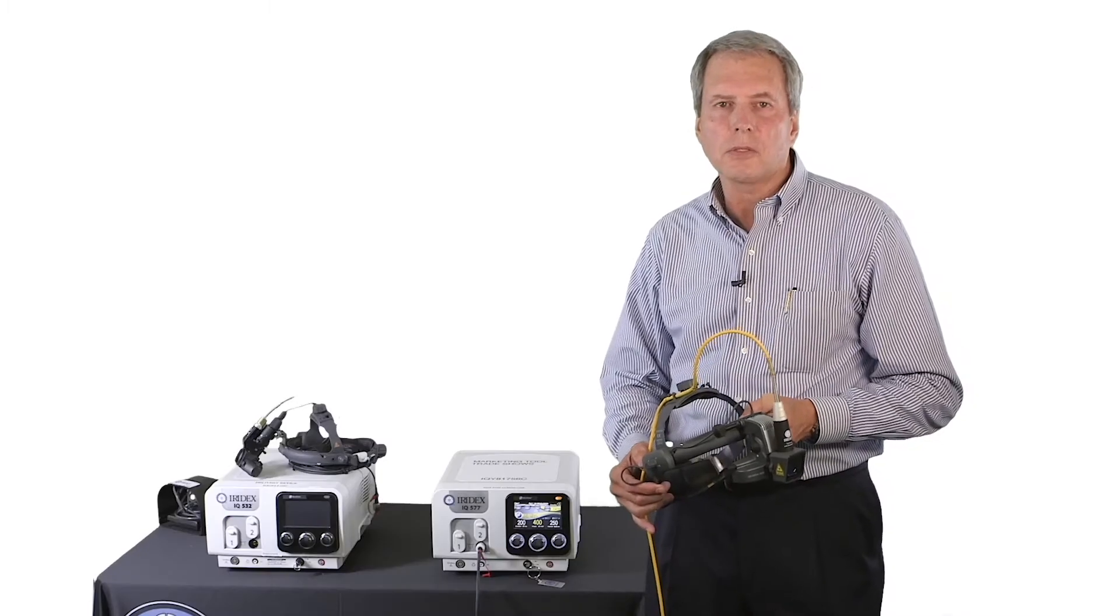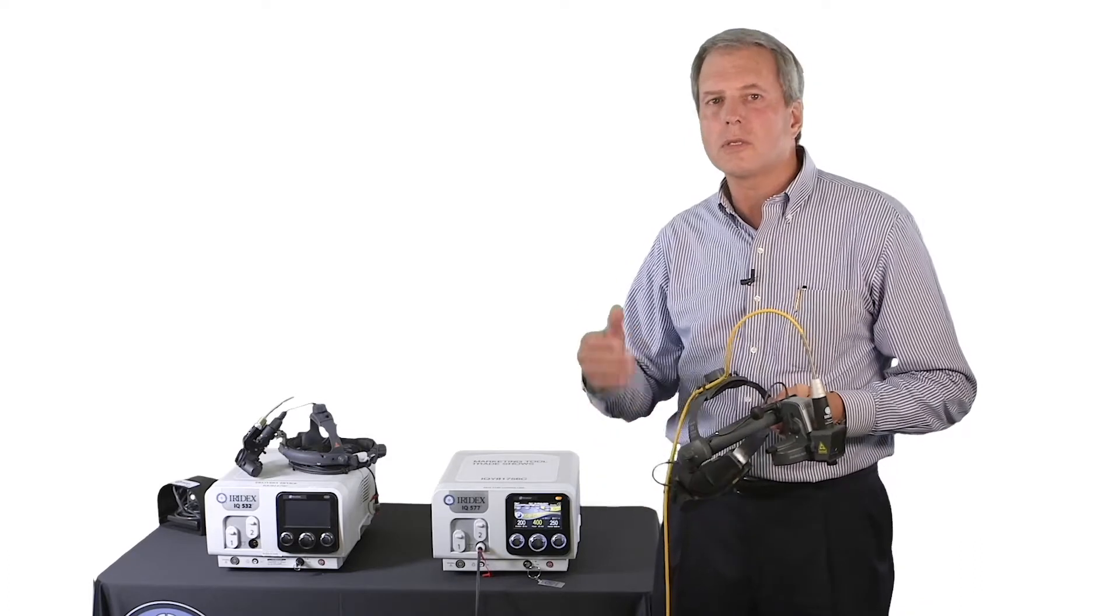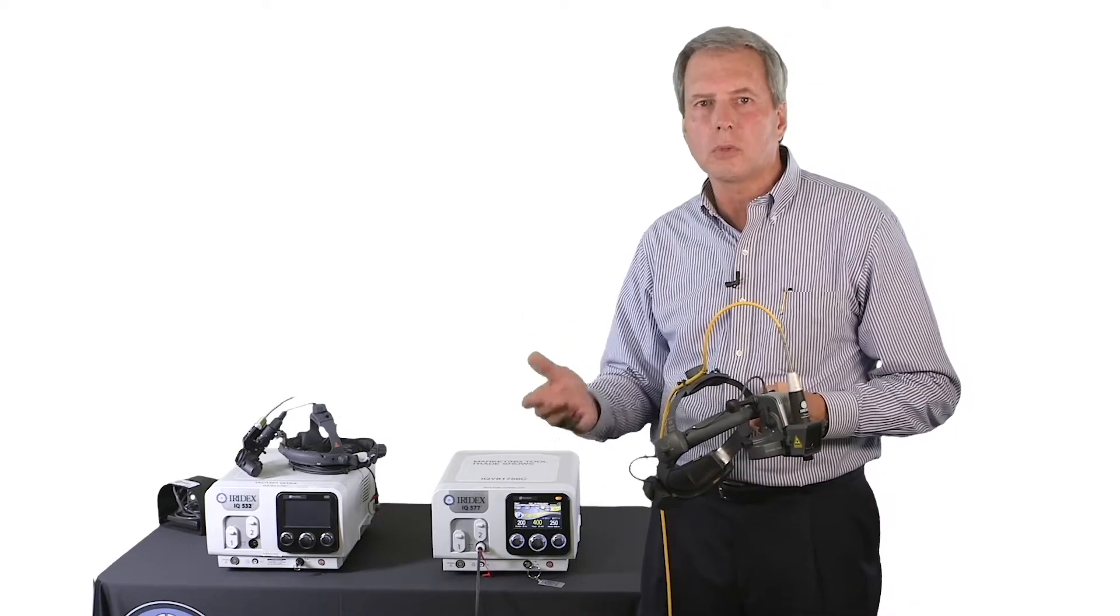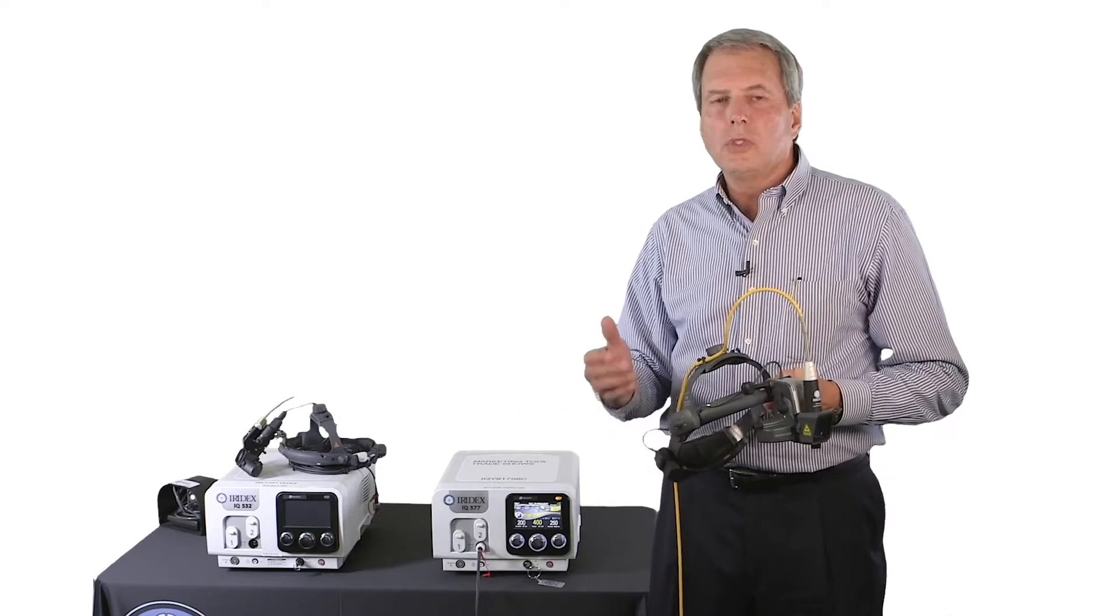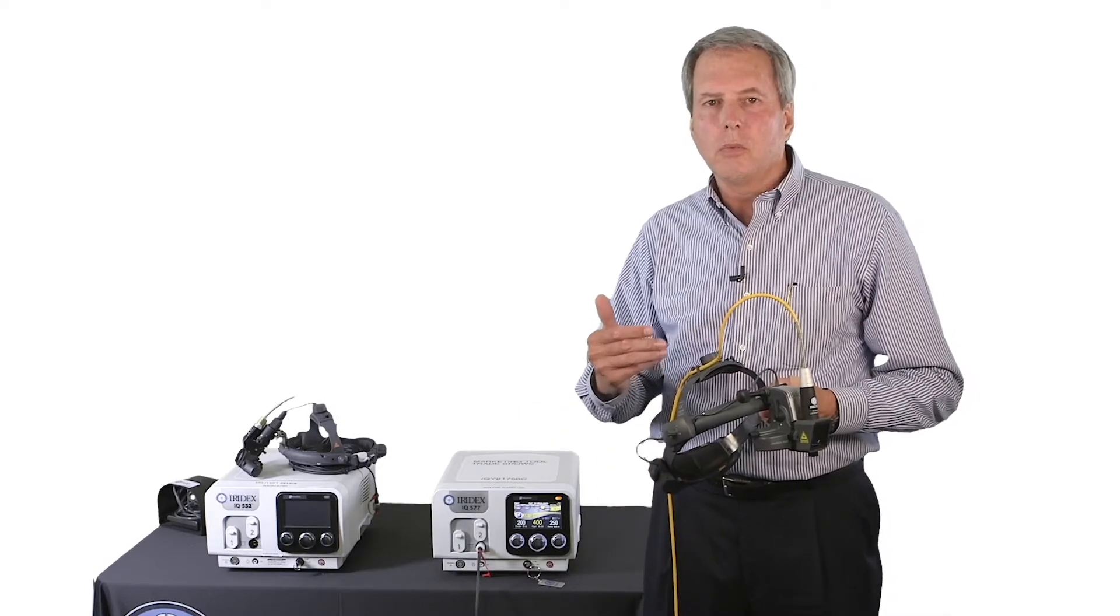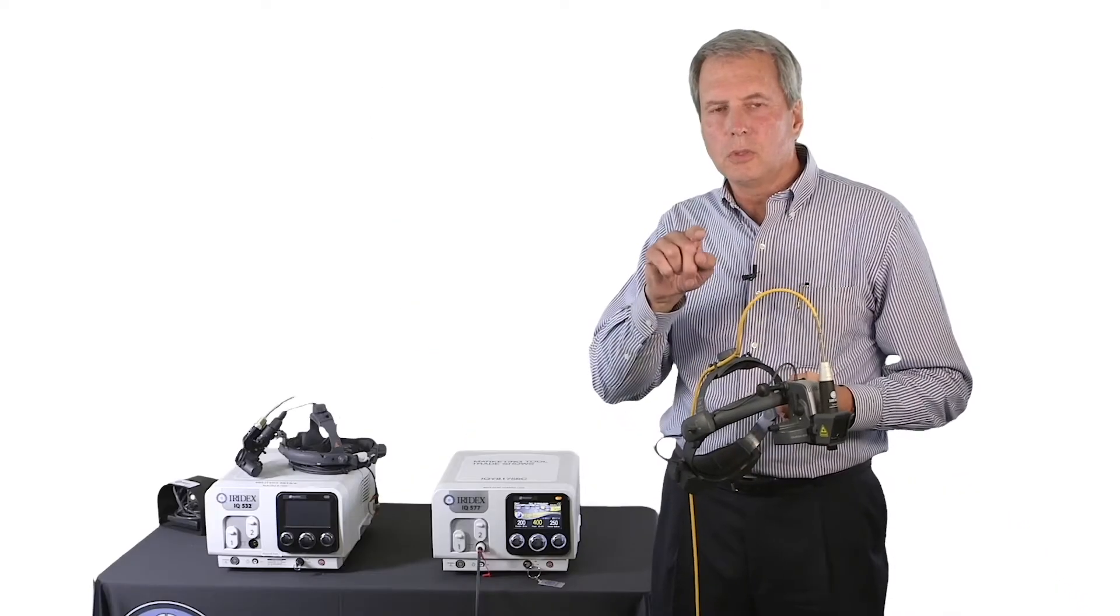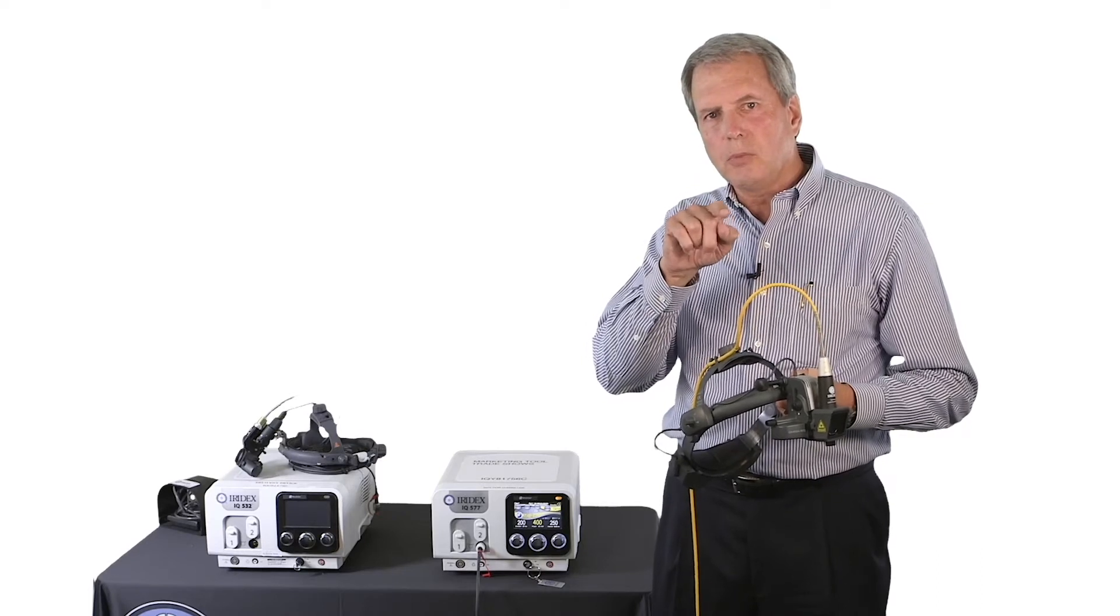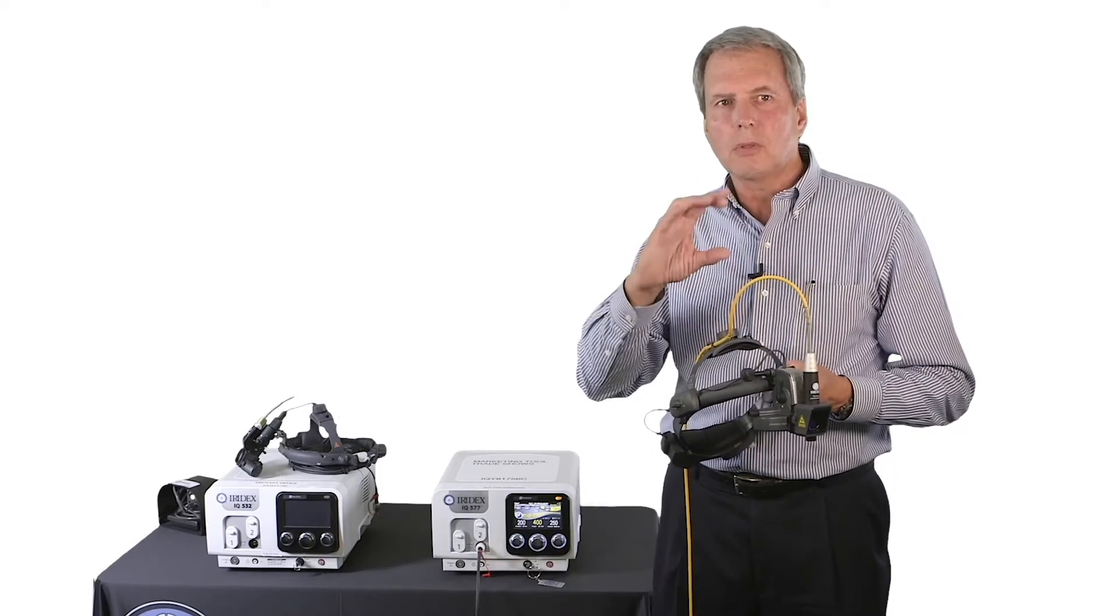You're going to have a lot of practices that eventually will have both the new TrueFocus as well as the legacy or the older style single mirror Iridex laser indirect ophthalmoscope. What you need to know in working with your surgeons is that they're used to inherently just intuitively using the older style indirect. It's a single mirror system. It allows you to adjust the aiming beam within the illuminated field, and then you adjust both simultaneously.